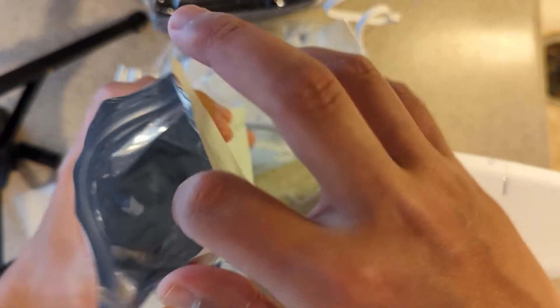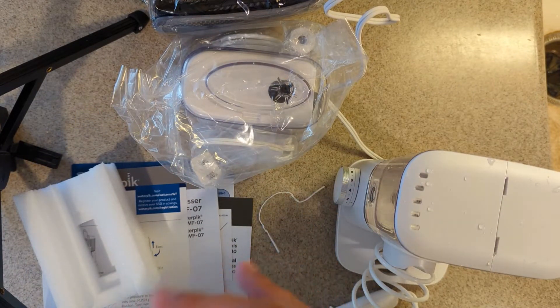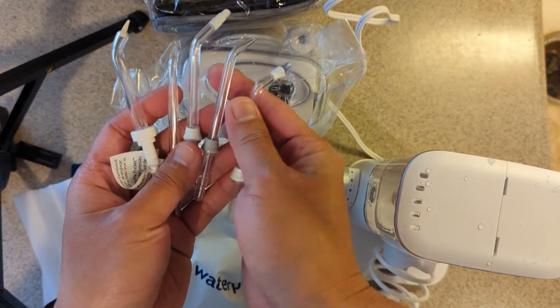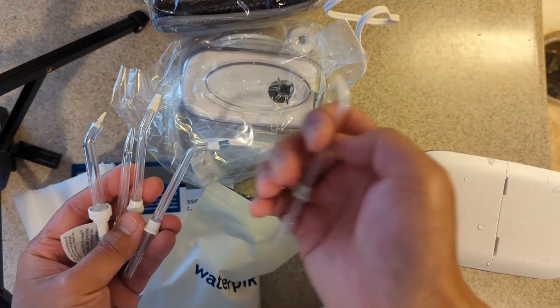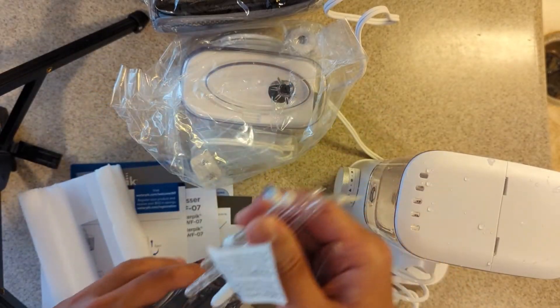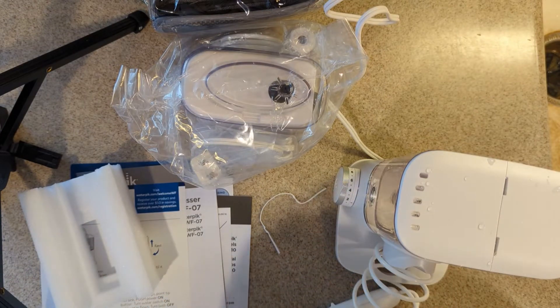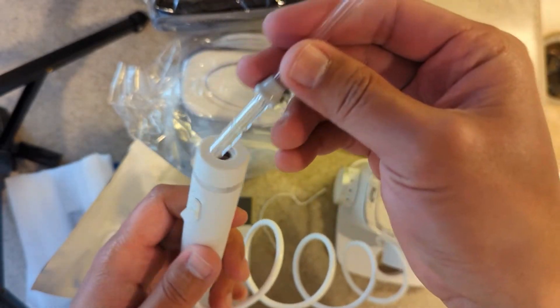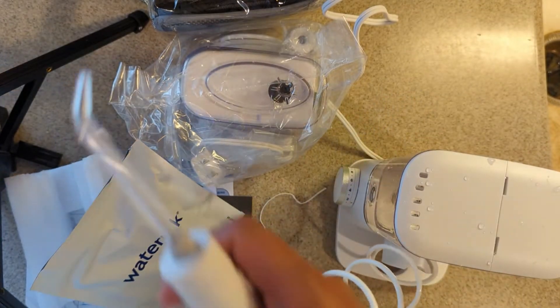So there are five tips. Here are the tips, and I think this one is the standard one — the one we should get started with. I'll put the other four back into the pouch. Alright, we can put this in — let's see how it works.